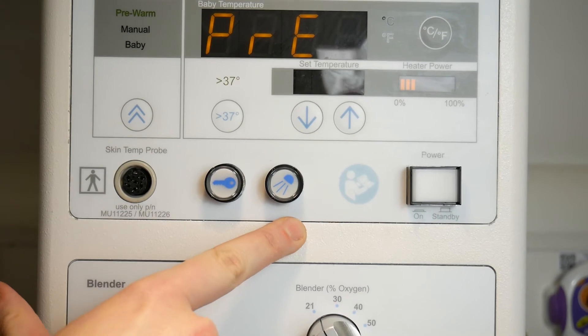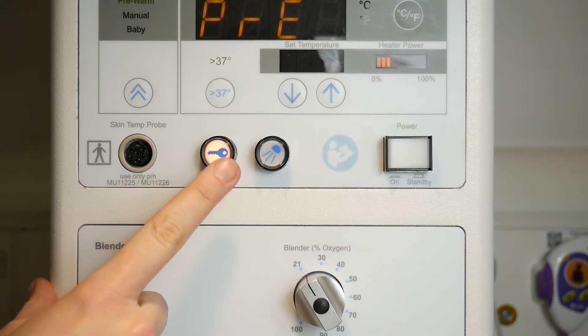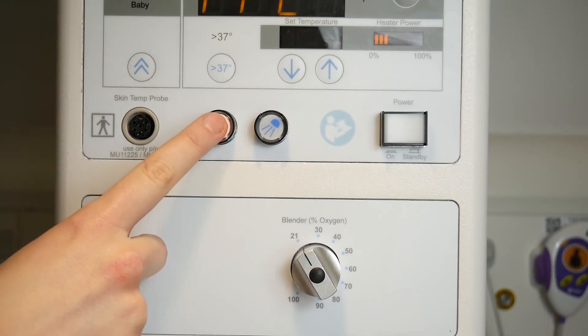You've already seen the power and the light. This button with a key locks the settings so they can't be changed until you press it again.